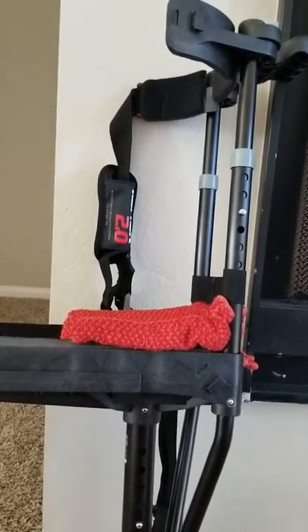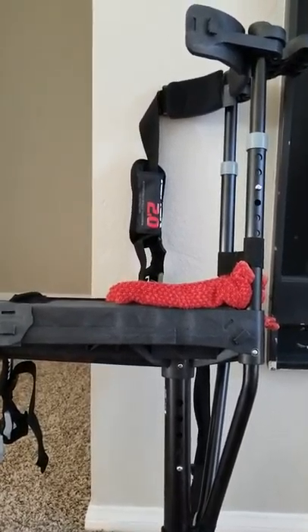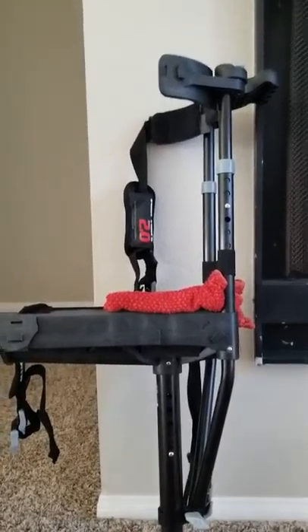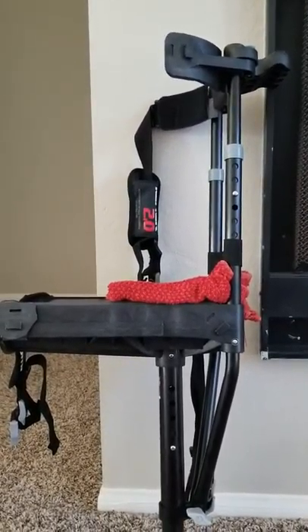You can adjust different things to your needs. But I'm telling you, if you're thinking about anything else and you want to get off the crutches, this is the best thing ever. Look at some other videos and they'll let you know how to set it up.